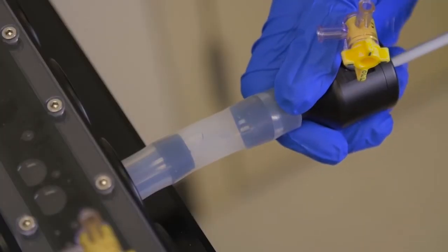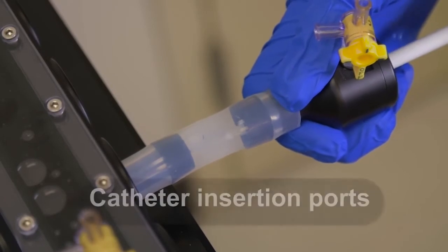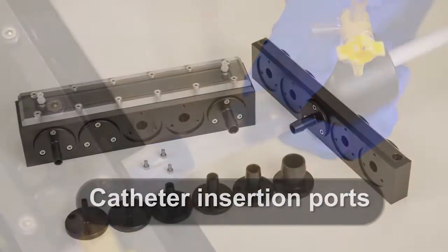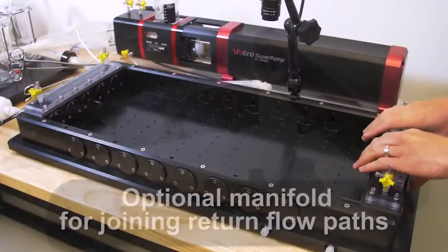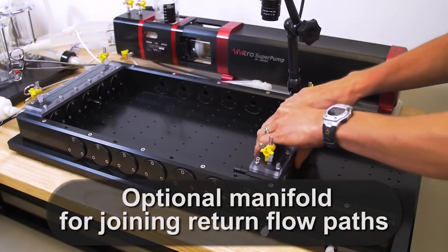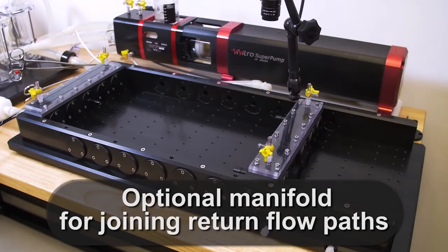Optional catheter insertion ports facilitate device deployment, measurement, and positioning. Inlet and outlet ports can be swapped out for the optional manifold for joining the return flow paths.